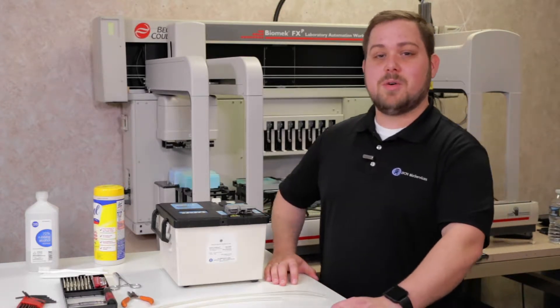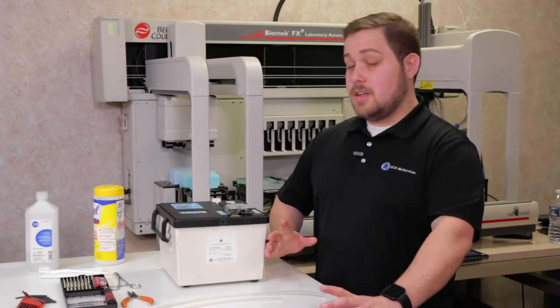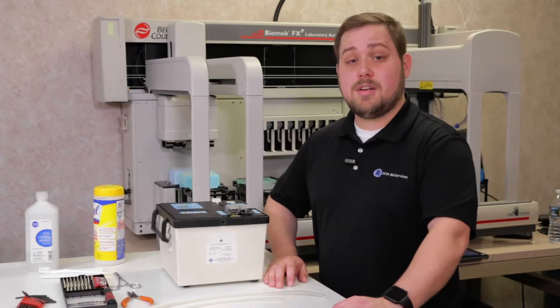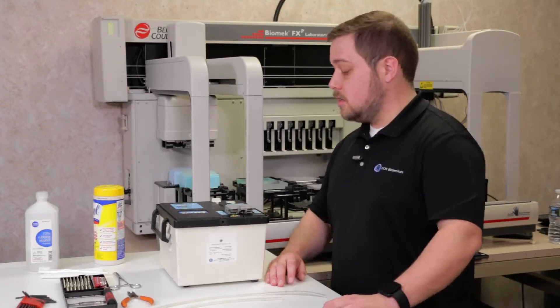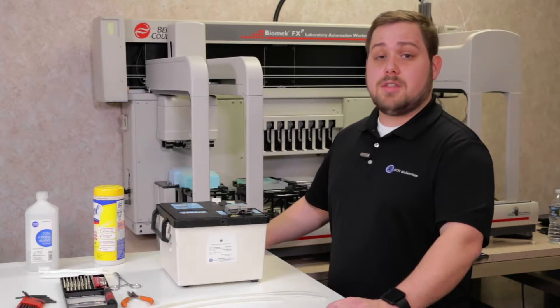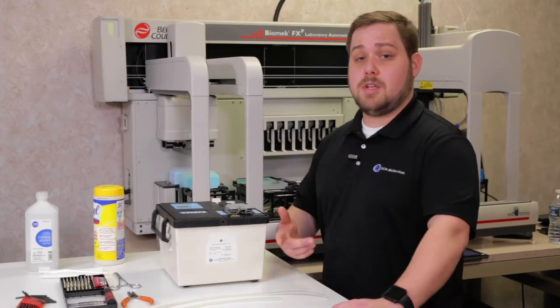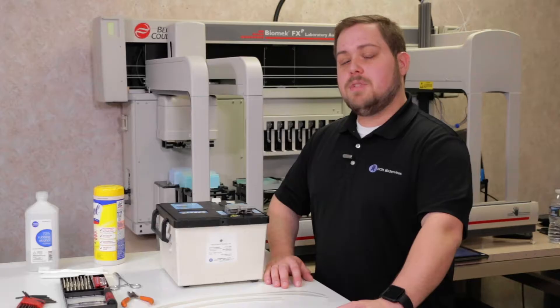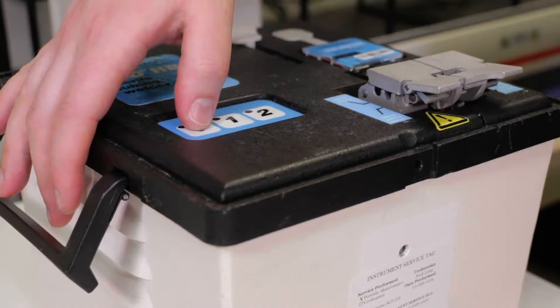One great feature of the Terumo SCD2B tube welder is the beep error code. This will help you troubleshoot and identify any issues that your Terumo welder has run into. When immediately powering on the system, if a power supply issue is detected, a repetitive beep will occur. Typically you'll need to replace the power supply, and DCM will be happy to assist you with that.